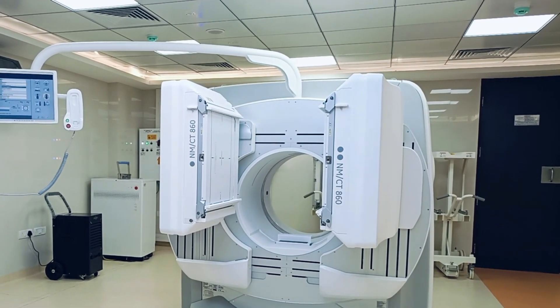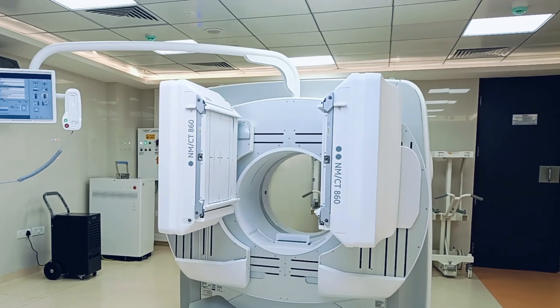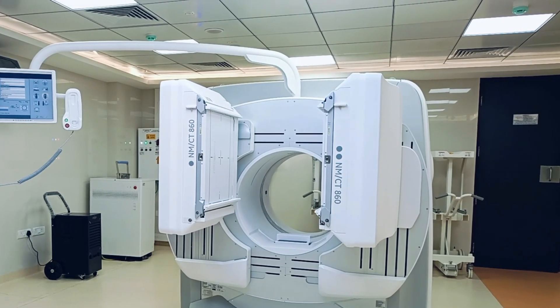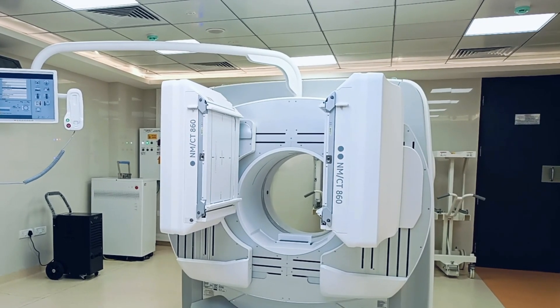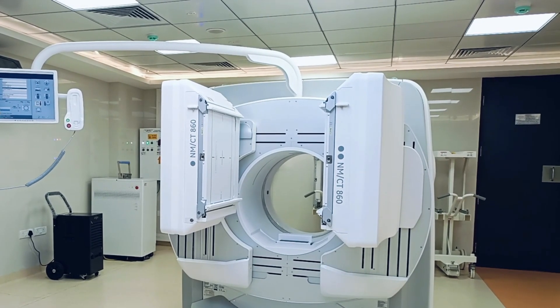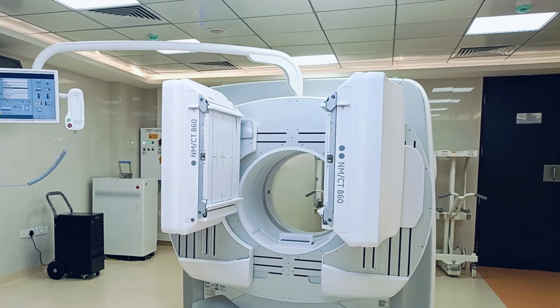The next option is vertical outside low. Press set and press OK. The patient can stand here and you can perform static or dynamic images.